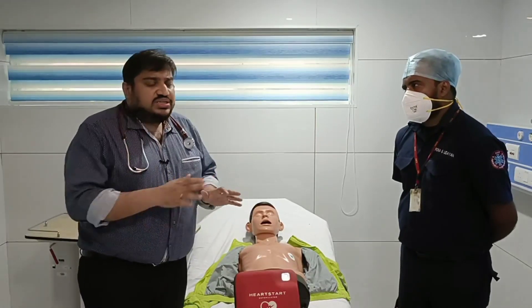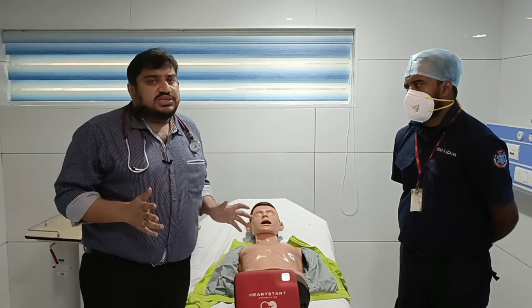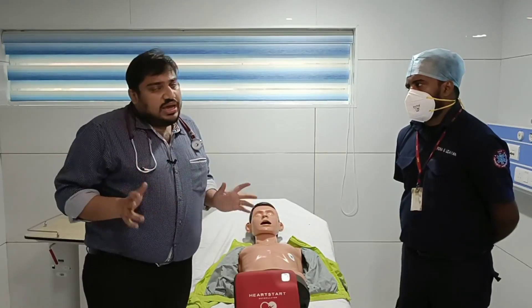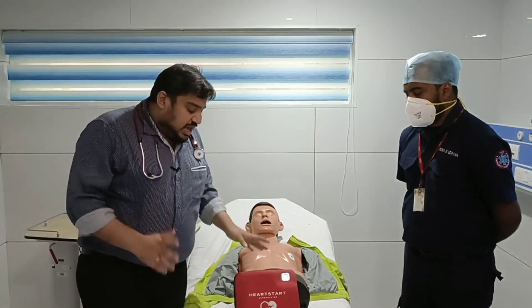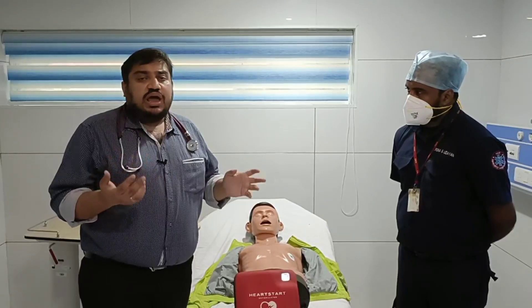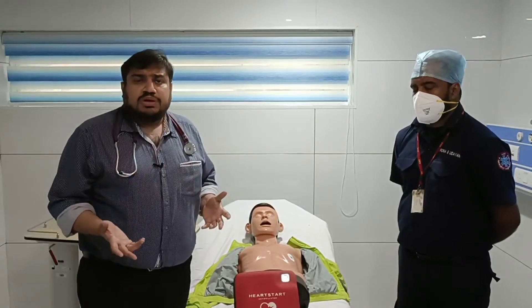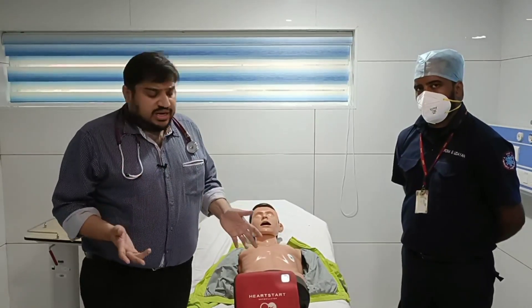The AED is basically meant to be used by a lay person. It doesn't require a medical background — any lay person can use an AED. The AED has certain parts, and how to use it is pretty simple.